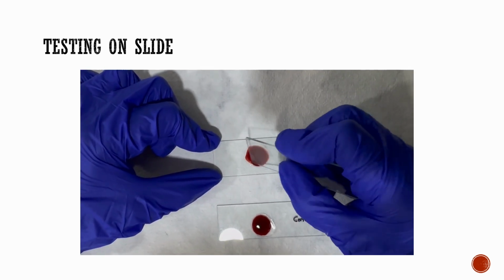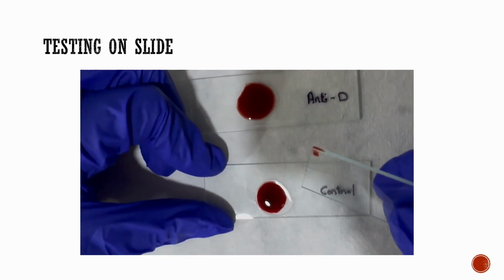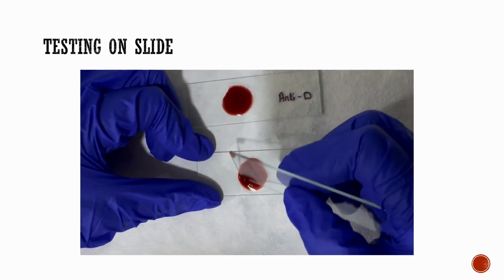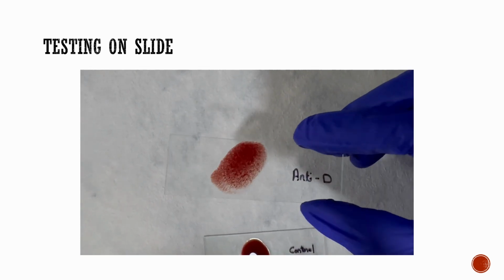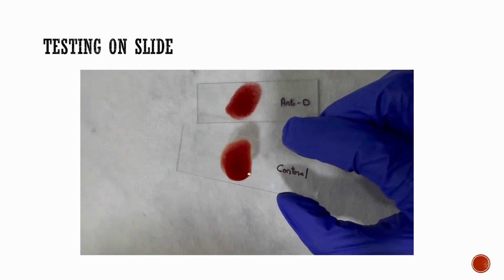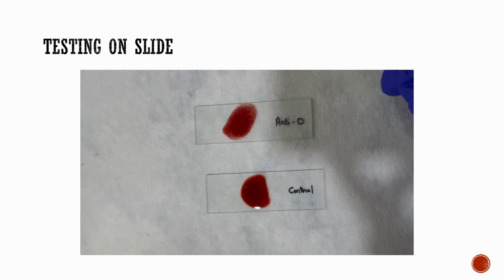Here we are mixing the reagent slowly with a clean glass slide in a circular fashion. We do the same on both slides over about a 20 millimeter diameter. After that, we tilt the slides to observe for agglutination. On the anti-D slide, we can see a clear macroscopic agglutination, whereas on the control slide there is no visible agglutination.